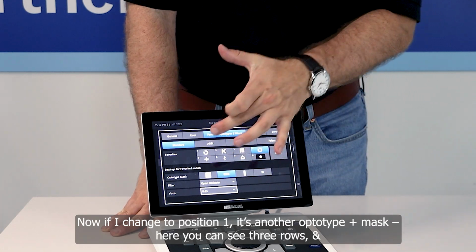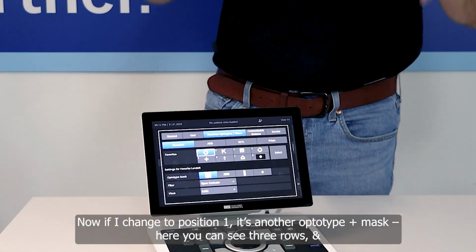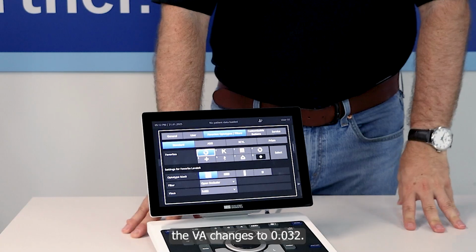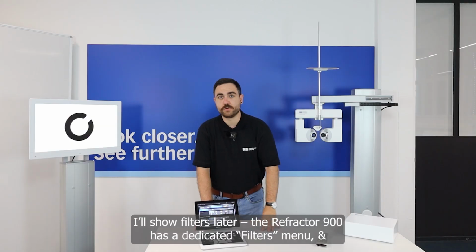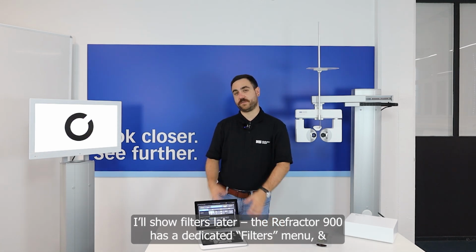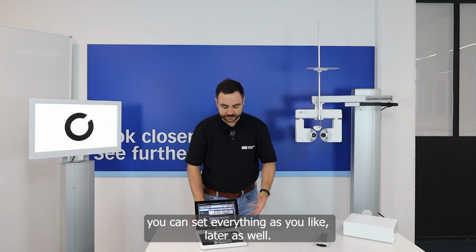So now you can see if I change to position 1, it's again the optotype mask where you can see 3 rows, and also the visus changed into 0.032. The filter I will show you later which filters are possible with the Refractor 900, because it's also an own menu and you can set it up as you want in a later case also.